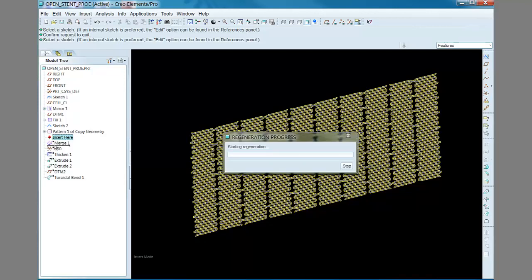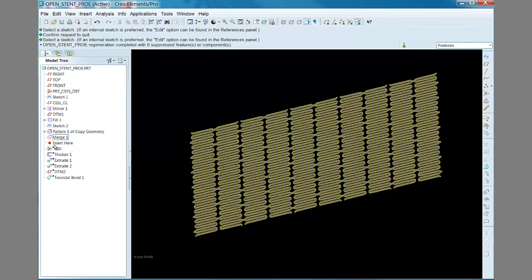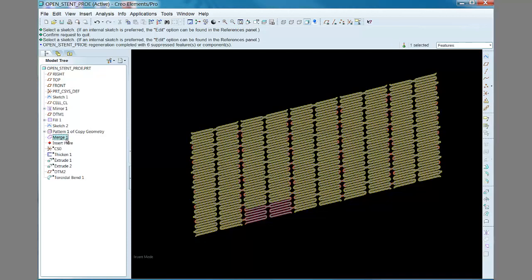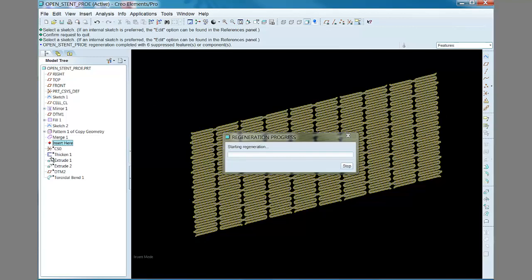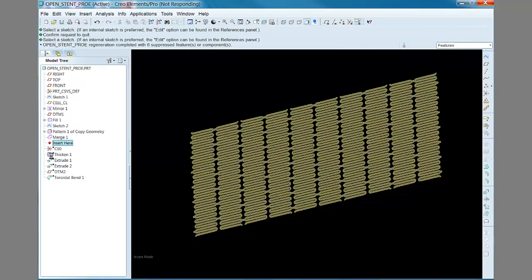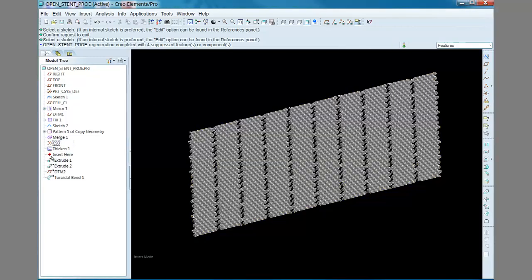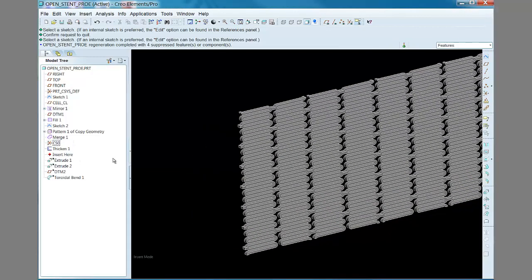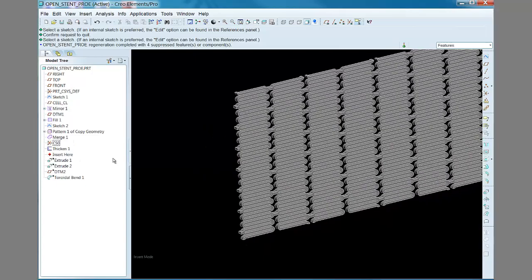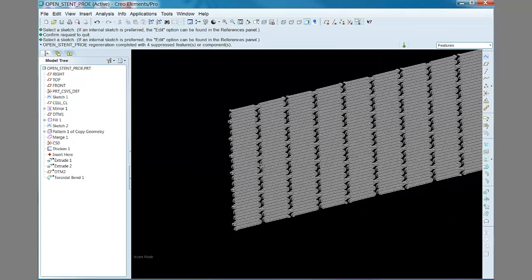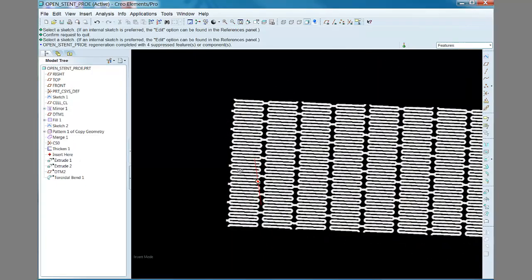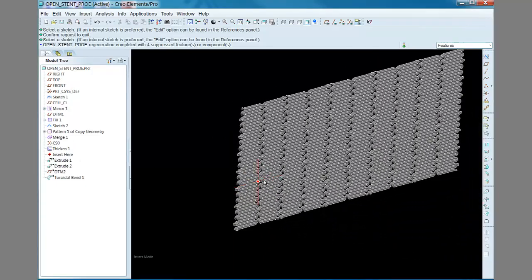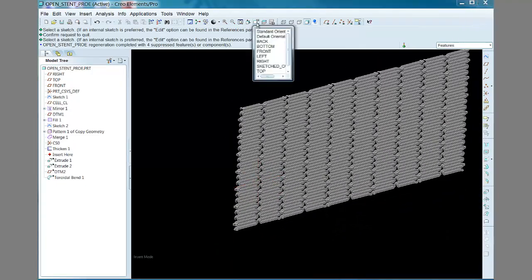Merging the surfaces into one quilt makes it easy to just solidify and thicken the quilt. Notice that the y direction eventually becomes the theta direction, so it's very important that after being patterned, the y direction distance is equal to the outside diameter multiplied by the value of pi.